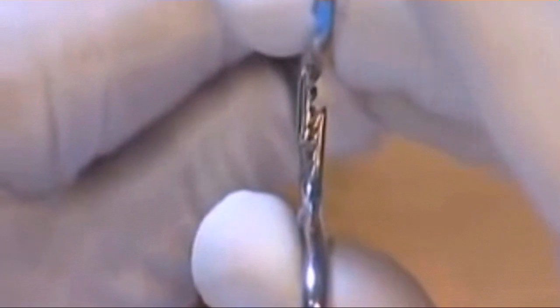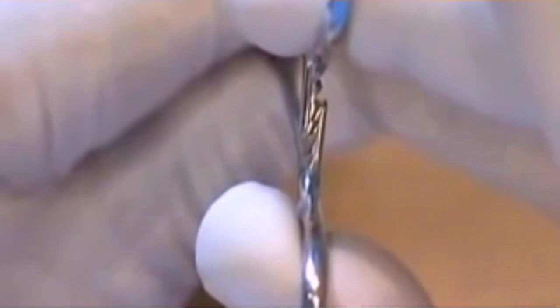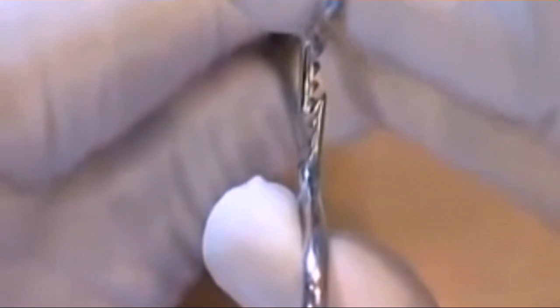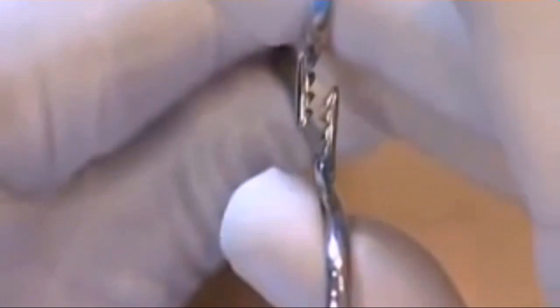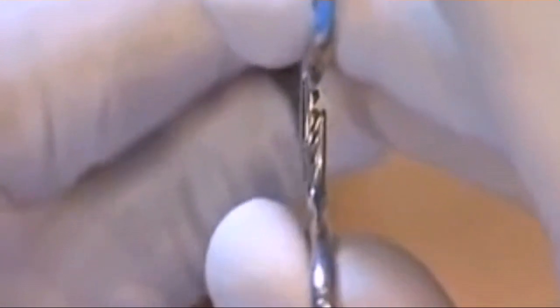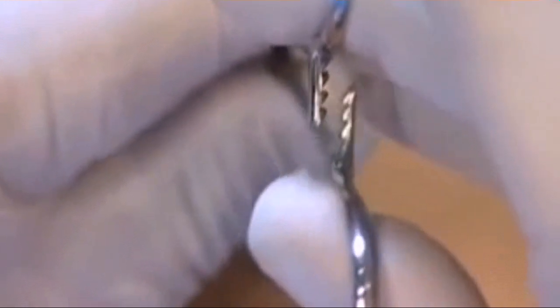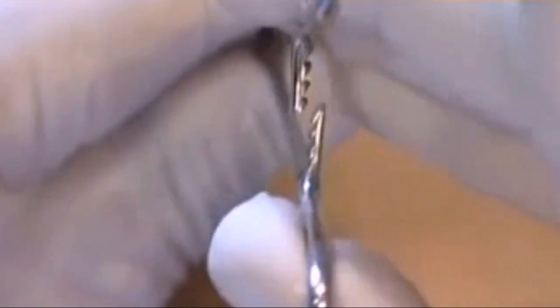The finger has to push to unlock like this. The thumb has to pull to unlock. So in fact what happens is that both are used at the same time.